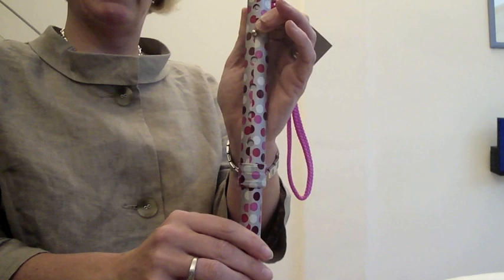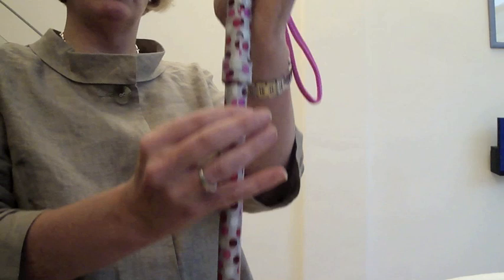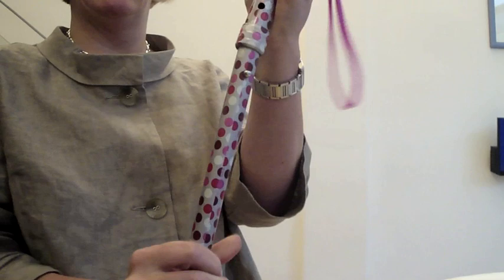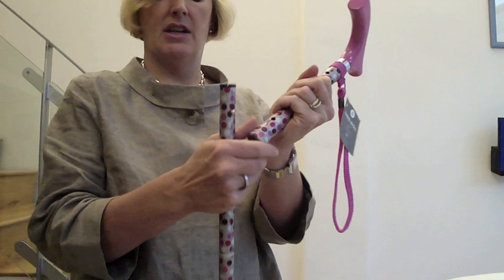When you're doing a demonstration, it is sometimes possible to push the pin in and if you pull the bottom quite vigorously you can end up pulling the stick apart. If that happens, it's not a problem — you actually need to do that to remove the wrist strap anyway. So you simply take the safety locking band off.